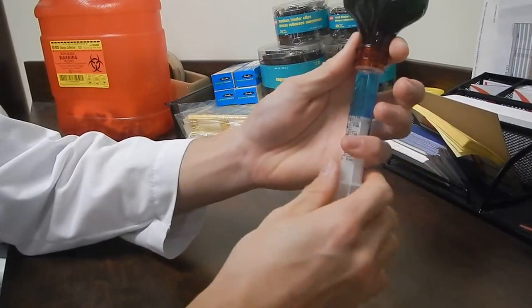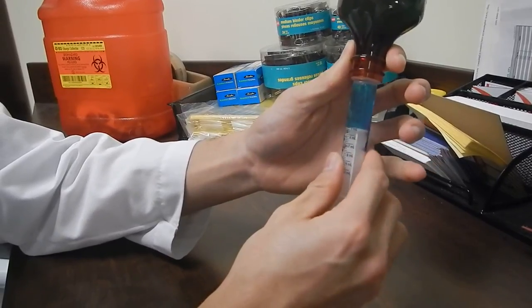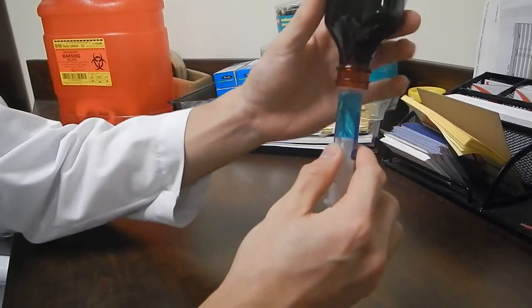Once it's there, that ensures you're going to be getting the five milliliters of the medication that was dosed by your doctor.